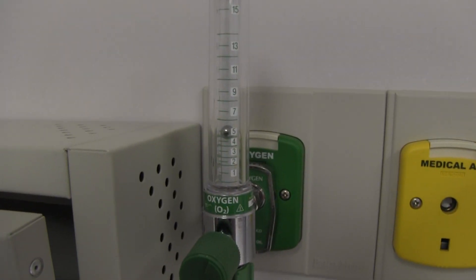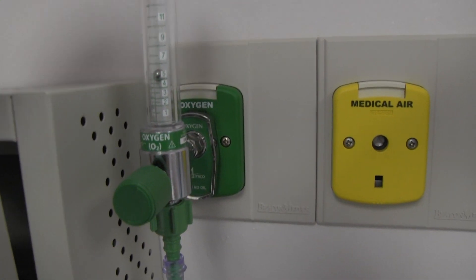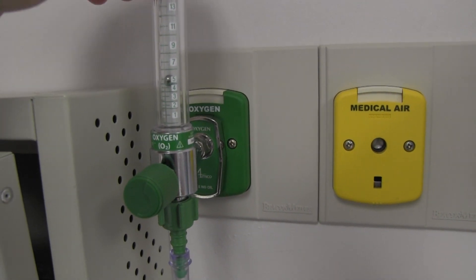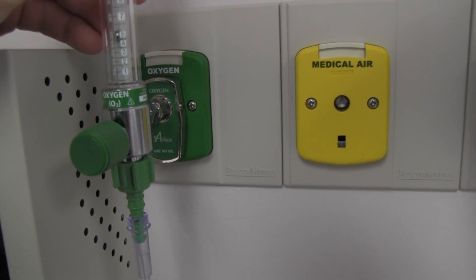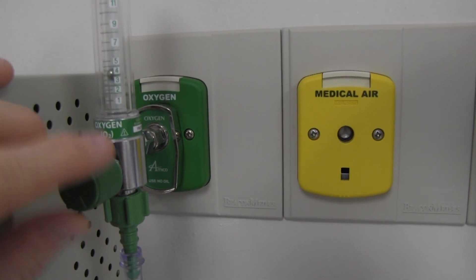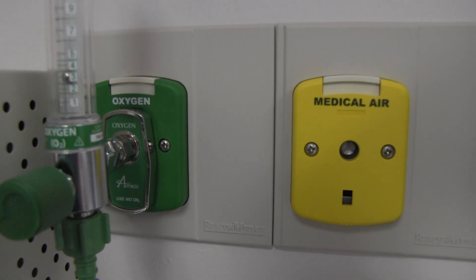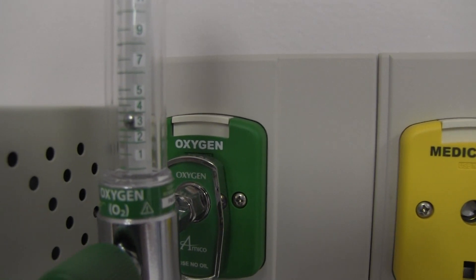These compensated Thorpe tubes make all kinds of different sounds depending on how they're hooked into the wall, so that could affect us slightly. We'll keep it stable for the experiment. Let's go to a more normal home oxygen flow — three liters. You can see three liters on the meter.